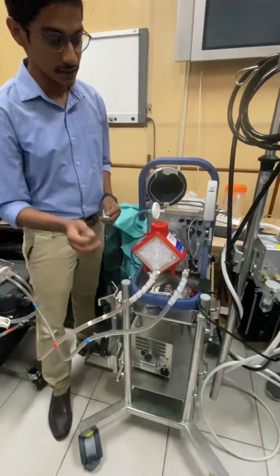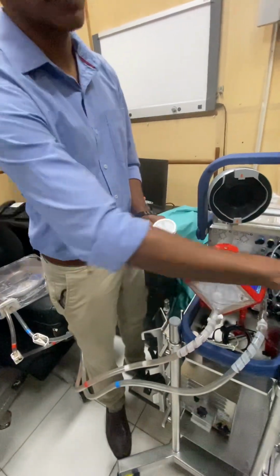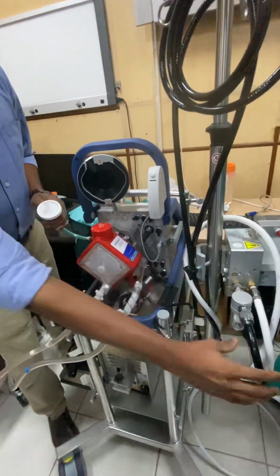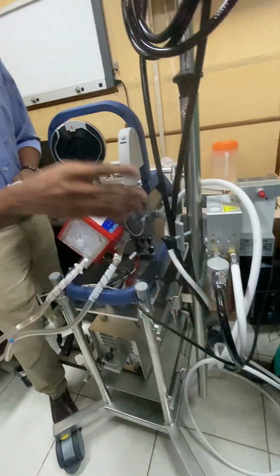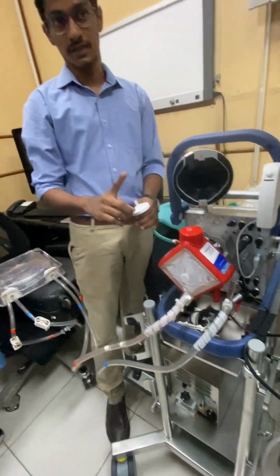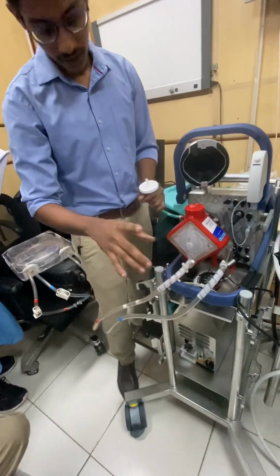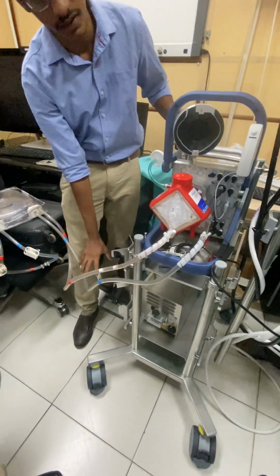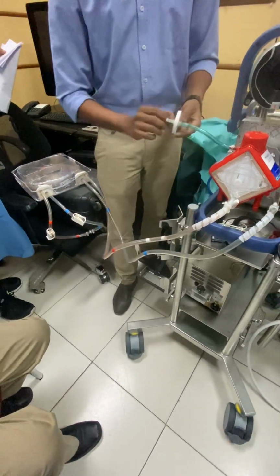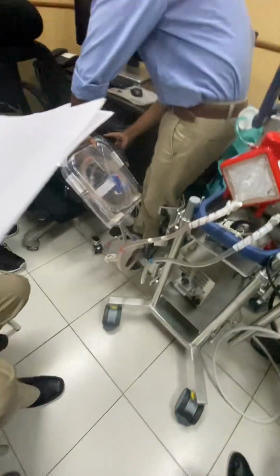Now once you have fixed it, you need to connect the blender to the machine. This is the blender. The oxygenator should have a gas supply, right? So these two will go to the central supply. Through one comes the oxygen, the other comes the sweep. You can also keep a cylinder, for transportation or in situations where we use only an oxygen cylinder. In such situations we have a place for fixing the oxygen cylinder. You can place the cylinder here, and this will be connected to the cylinder. We have a dedicated tubing for that.